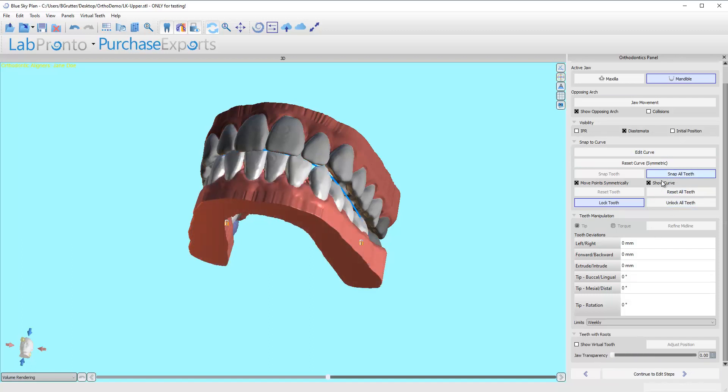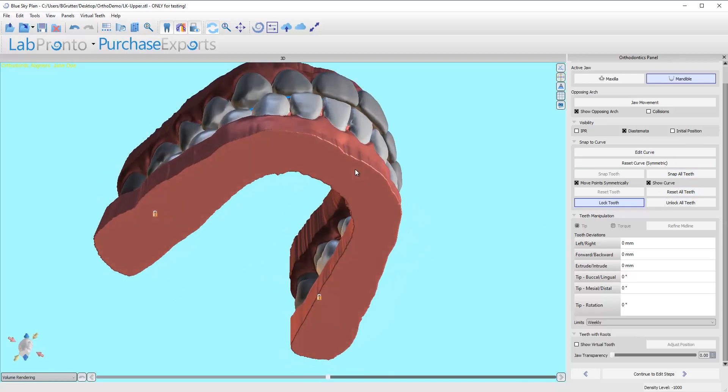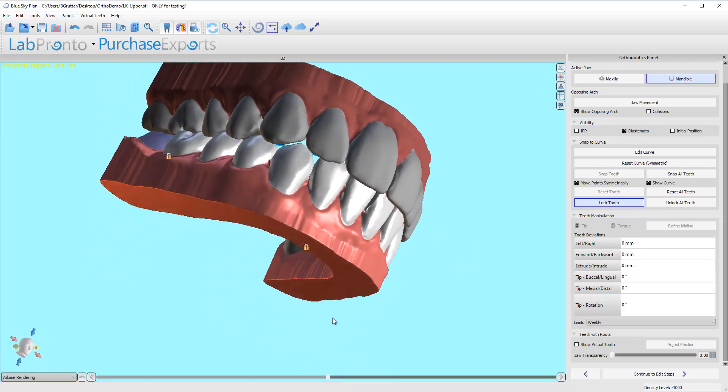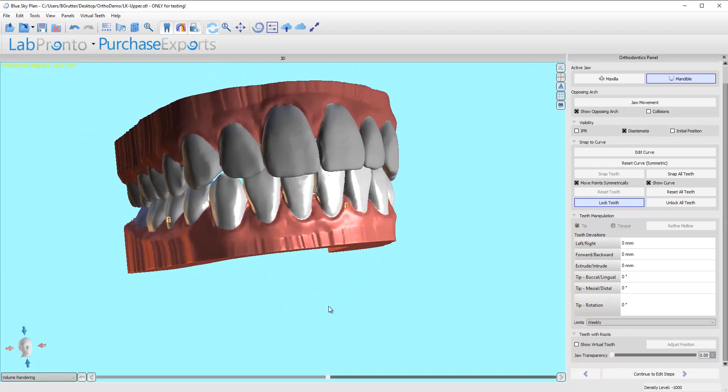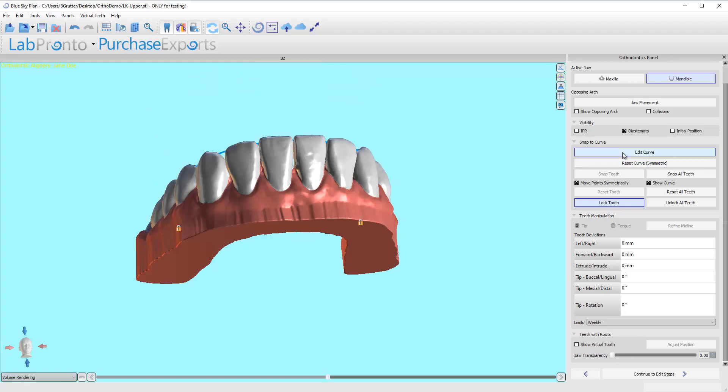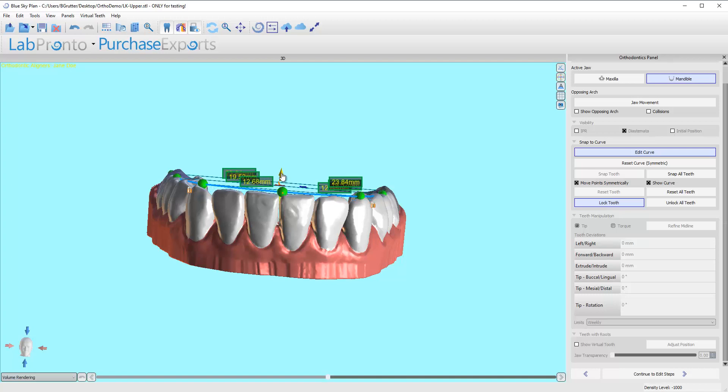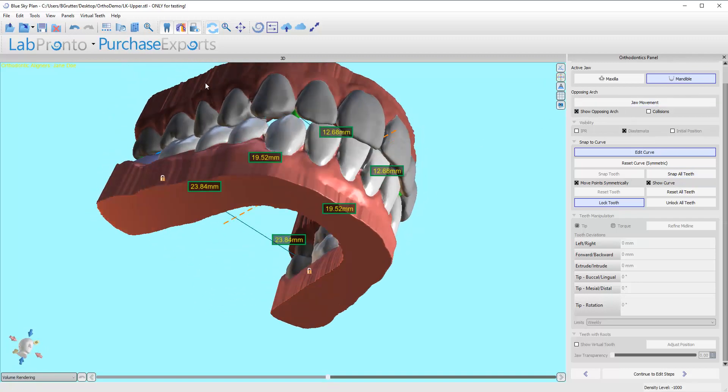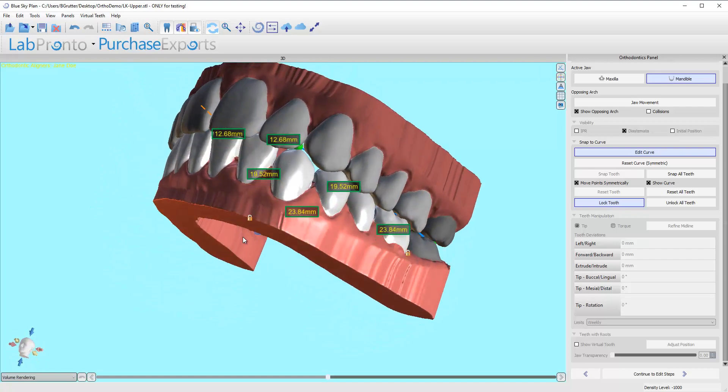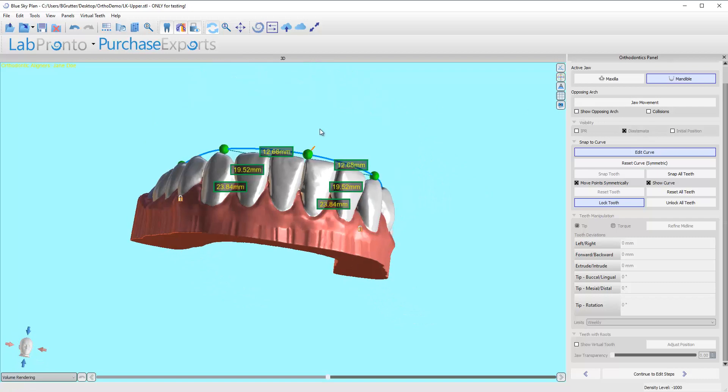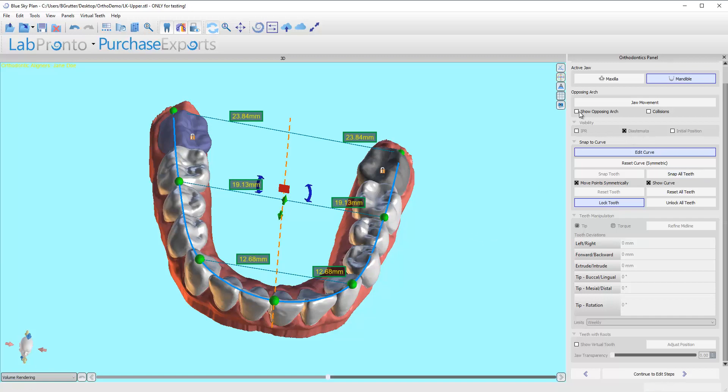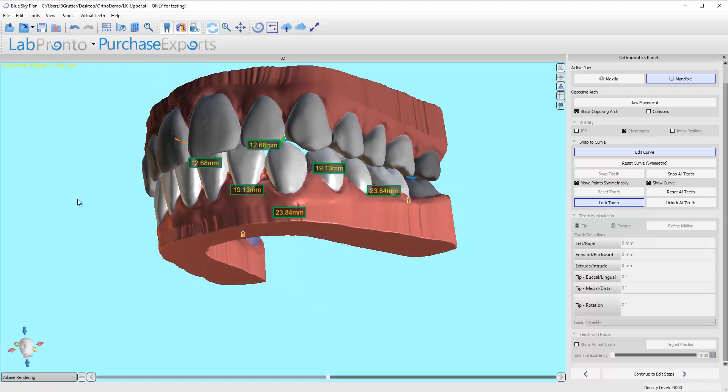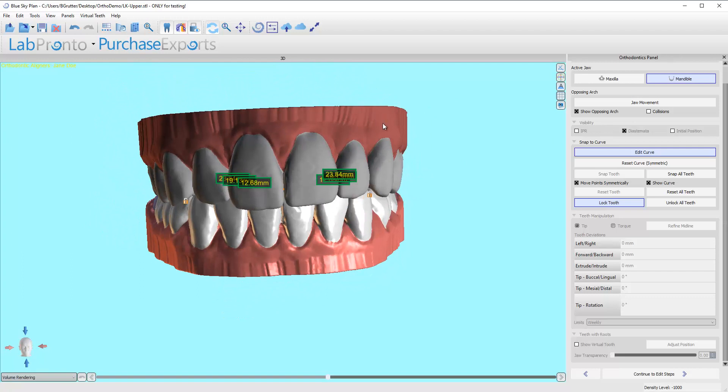I might have to re-raise it. Let's go ahead and turn off edit curve so you can see where these teeth are and let's say snap all teeth. All right, looking pretty good to me. I think we got some premature anterior contacts, so I'm going to have to adjust that a little bit. Also looks like we're getting a little bit of a cusp-to-cusp contact here. What I'm going to do is I'm going to turn off the opposing for a second, edit curve—I had to lower it a ways, so I'm just going to bring that back up—click snap all teeth. Looking better, that anterior is looking pretty darn good there actually. The posterior, I'm just going to go ahead and bring these molars in just a touch, snap all teeth. And that looks about right.